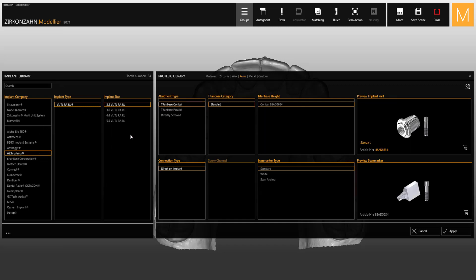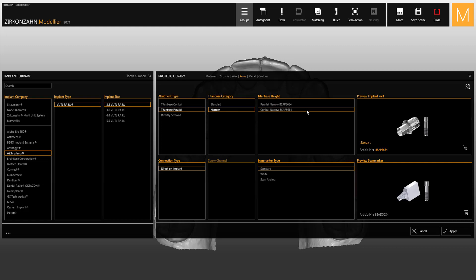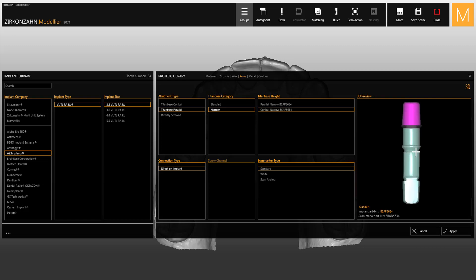The images are usually displayed in the 2D window, but you can also switch to the 3D rendering to rotate as well as hide or show the different implant components.